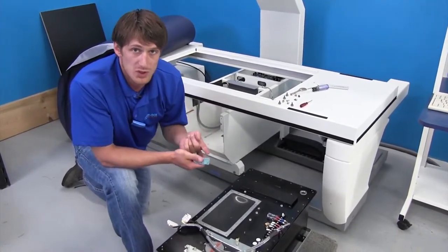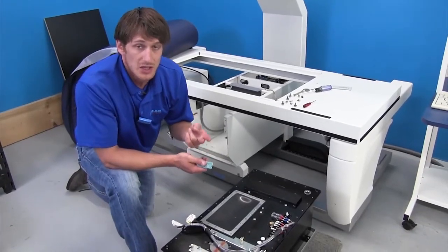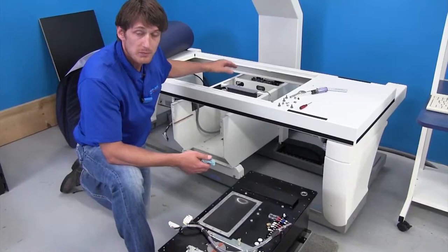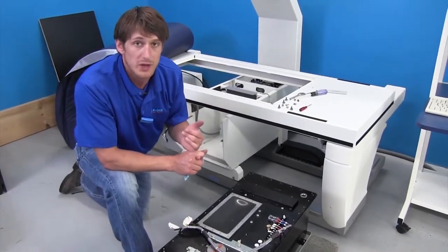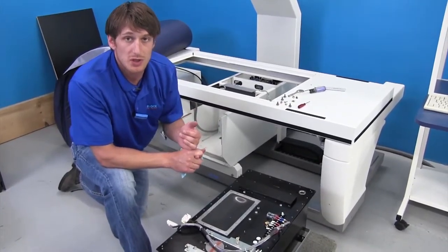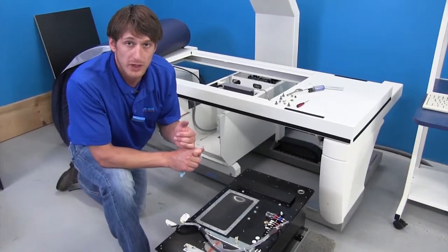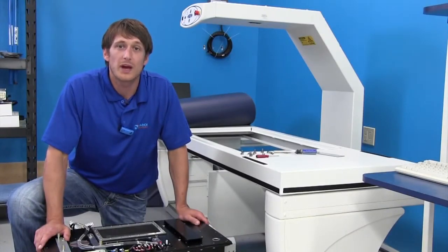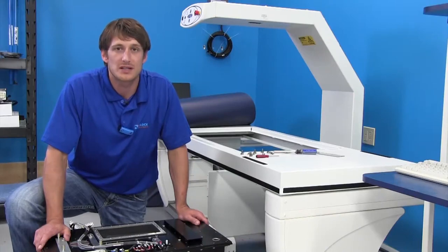Keeping in mind that once your tank is in, you need to verify an alignment and get good alignment with the aperture and filter drum. There's also an alignment tool that is specially used to ensure for good alignment before calibration. If you are in need of a high voltage tank replacement, we have them available. Please contact us.